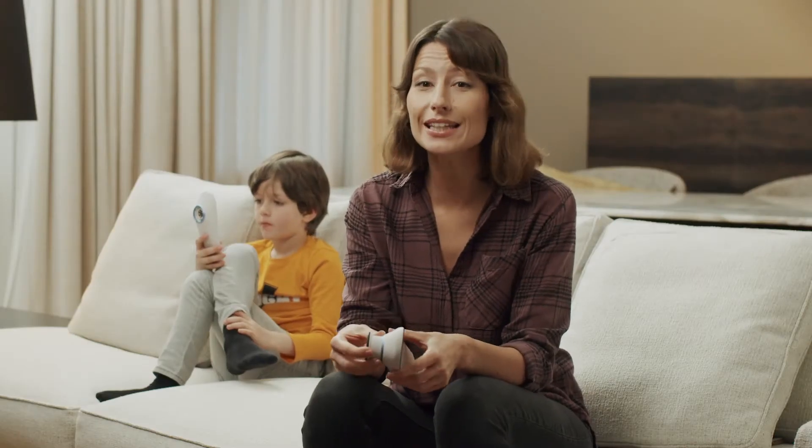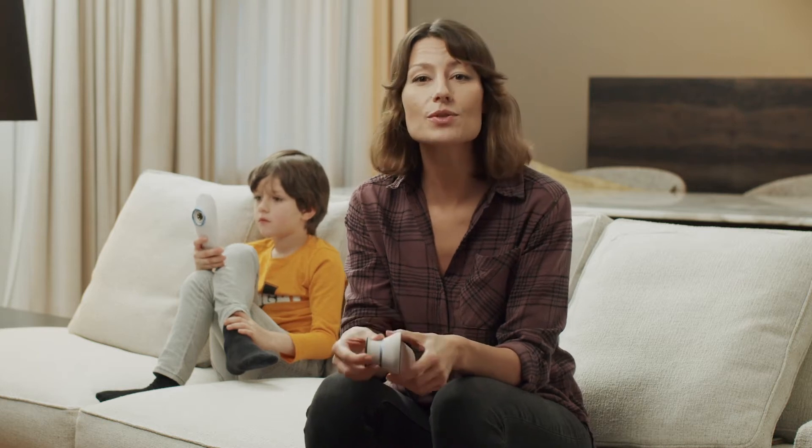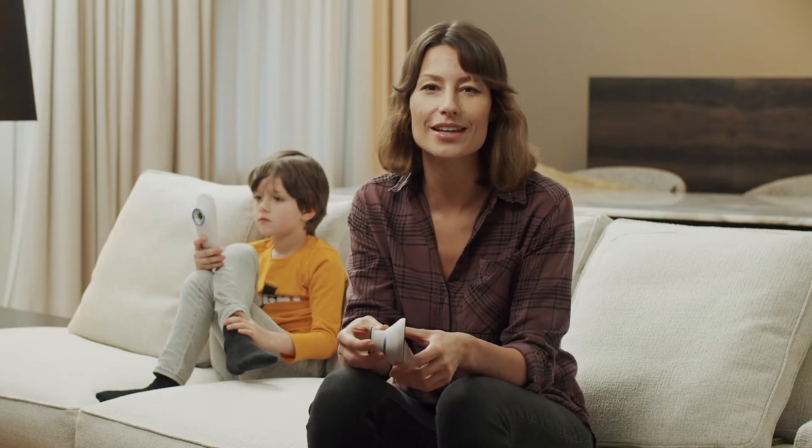Now, you will get to feel a little bit like a doctor, but you don't even have to keep the headphones in your ears. The exam is very easy and satisfying to perform.